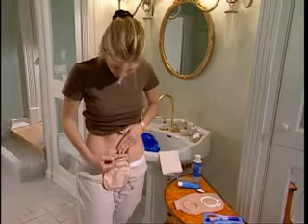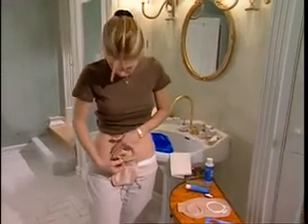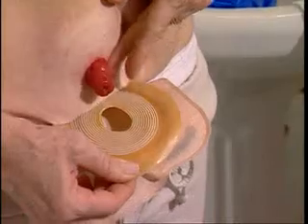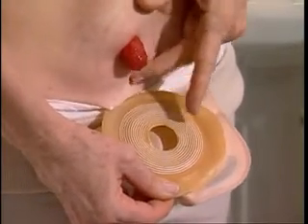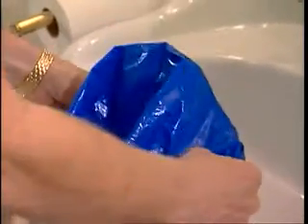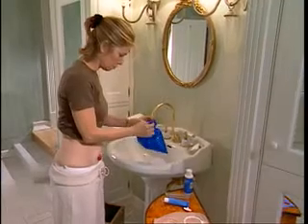Begin with an empty pouch. Gently remove the adhesive, working slowly from the top to the bottom. Push down on the skin as you lift off the adhesive. Never rip or tear off the adhesive, since this could cause your skin to become red or sore. Place the used pouch in a disposable bag, offered by some manufacturers in their pouch boxes, or in a sealable plastic bag, and dispose of in a waste receptacle.